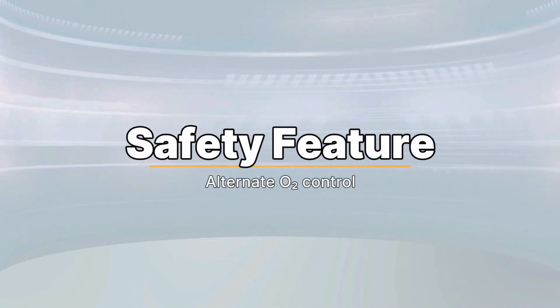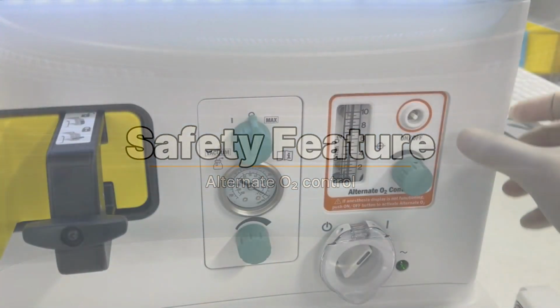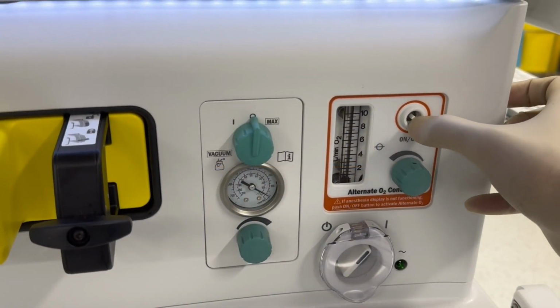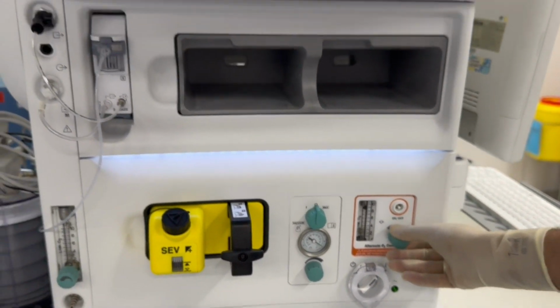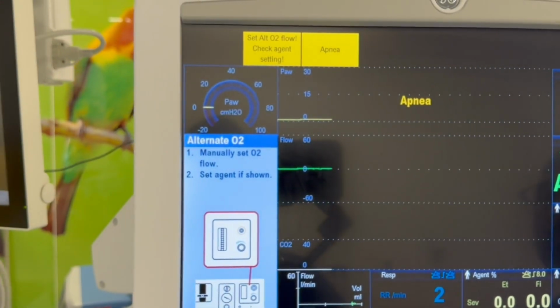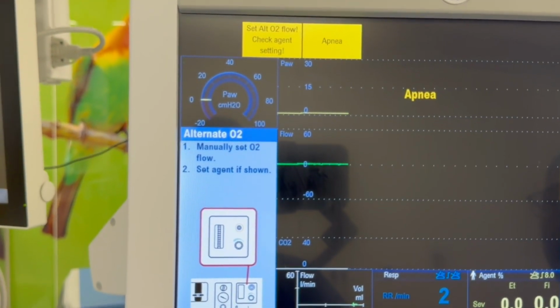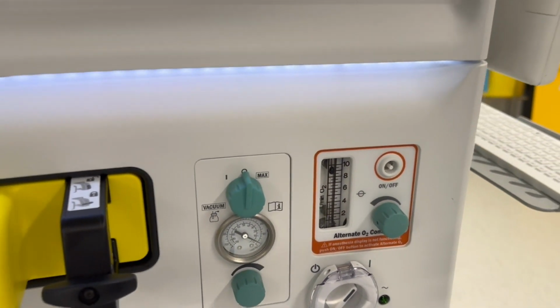The alternate O2 control automatically activates during certain system failures. It can also be turned on manually by pressing the alternate O2 on/off button. Then, adjust the flow between 0.5 and 10 liters per minute. A notification will appear on the screen. Set the agent to the desired concentration. To stop, press the button again and confirm on the screen.